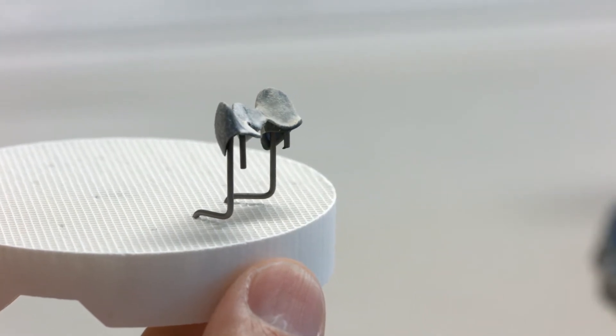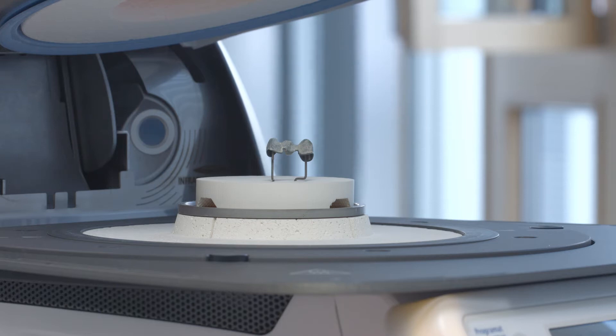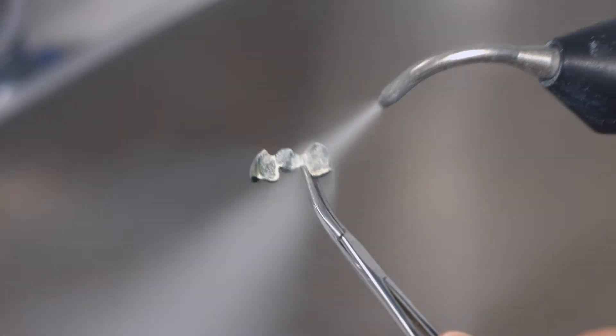Select the suitable program for firing the first opaquer layer. Make sure that the framework is adequately supported. Allow the wash-fired framework to cool down and then thoroughly clean it with the steam jet.